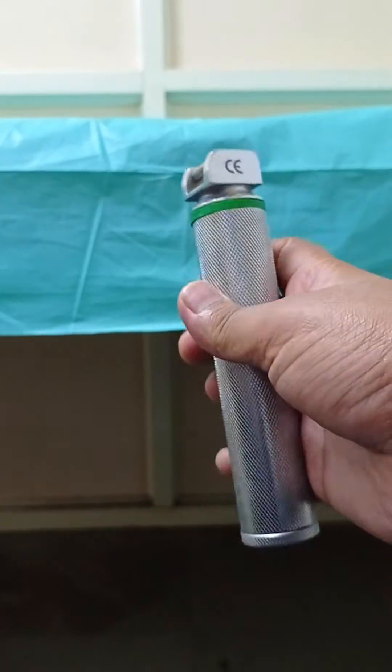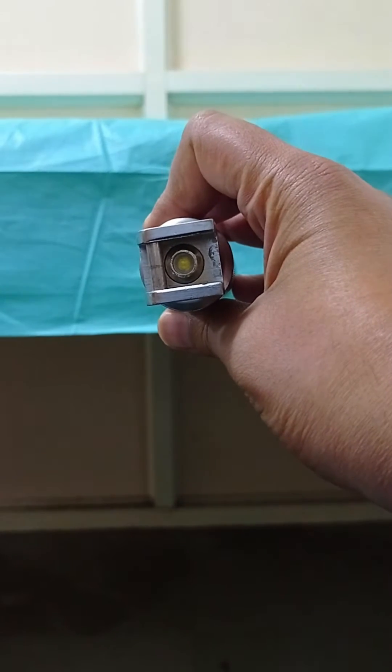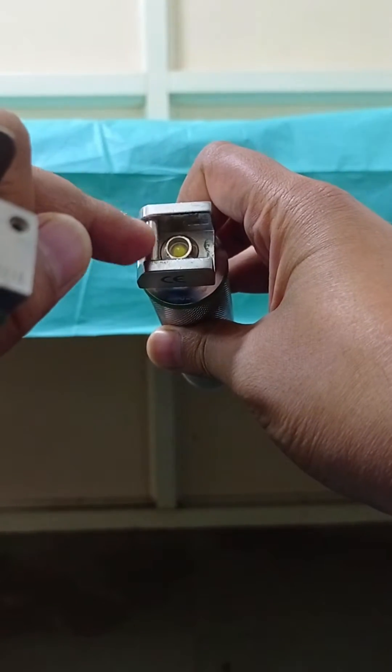At the top of the handle, you would see a light source and a bar on which the laryngoscopic blade is hinged.